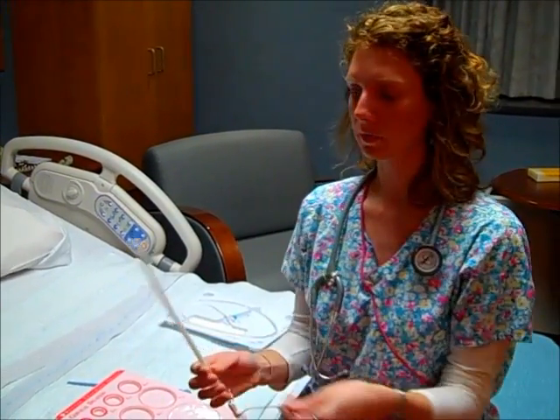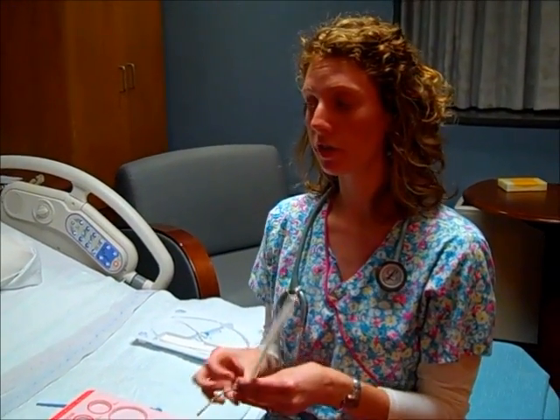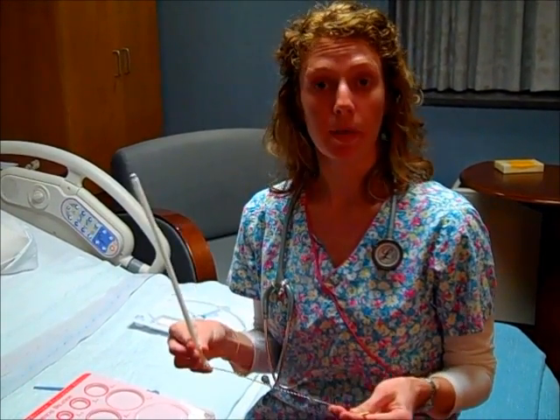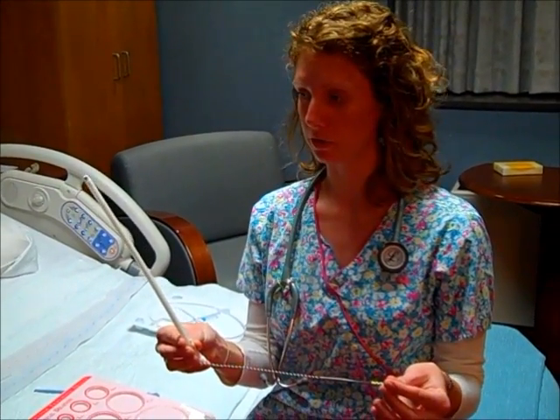Another tool is called a fetal scalp electrode. So this is used when the fetal heart monitor, the external monitor, is not picking up the fetal heart rate tracing very well, or you're not sure if you're getting maternal or fetal. And that's an important distinction to know, because the heart rate for a fetus would be between 120 and 160, and the heart rate for an adult, you'll remember, is less than 100. So they're very different. So if your baby's heart rate is less than 100, that may mean you have a problem, and you want to make sure that you're picking up the right heart rate. So the fetal scalp electrode is used for that.